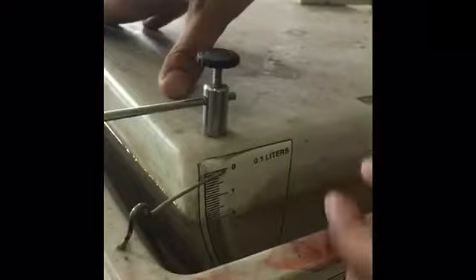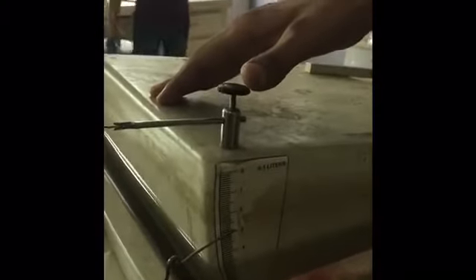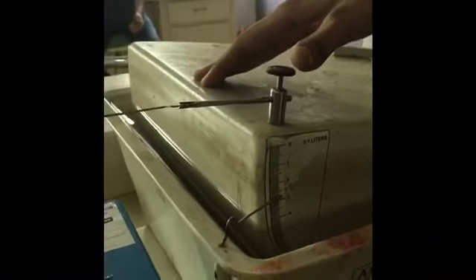You can see a zero point — mark it here as zero. After marking the zero reference point, bring the upper chamber of the spirometer upward and then mark a six liter point. So this is your six liter point, and below you have the zero liter point. You have to count all the small scales between these two points. Before starting the experiment, bring the scale to point three — three liters — then start the experiment.